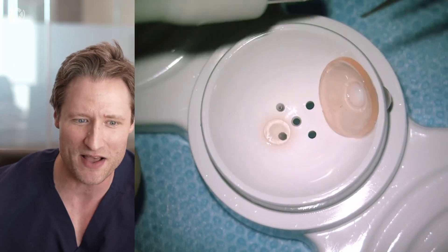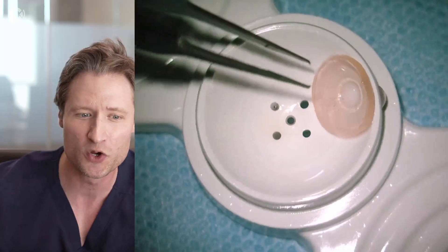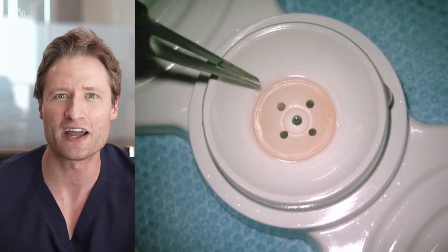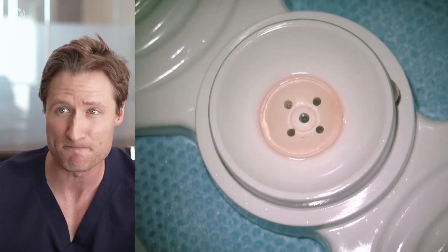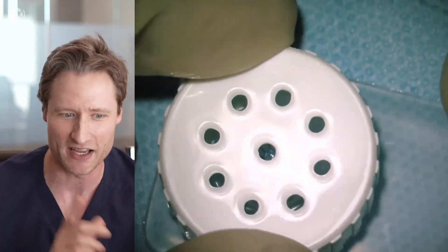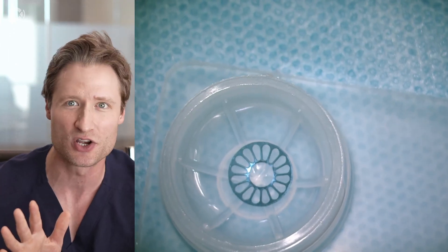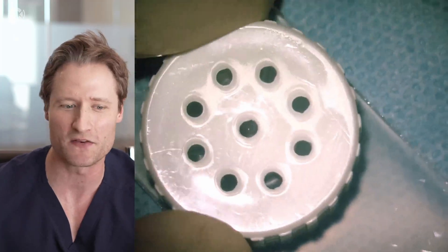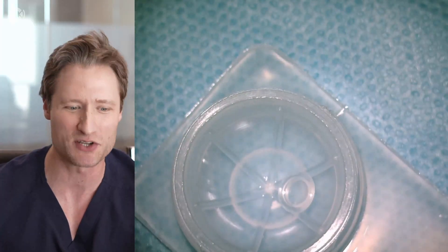After I've made this little central three millimeter aperture, I discard that little button which we removed and I'll center this donor tissue back in the dish while I evaluate the other components of the K-Pro device that were shipped to me. There are two other little cartridges that come in the pack. One has a little white cap — I unscrew it and the only thing in this dish is the titanium backplate. We open up the only other cartridge and there's the optical stem.